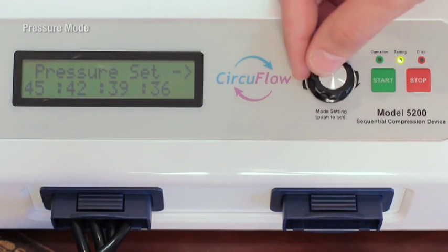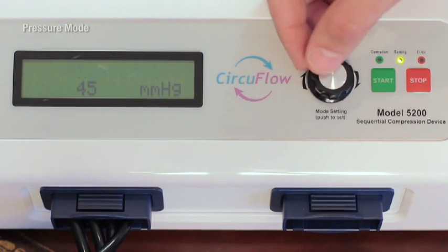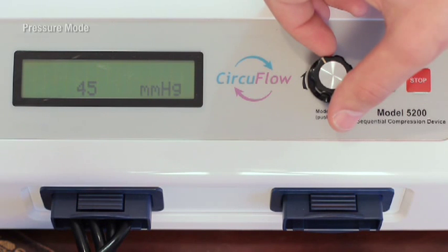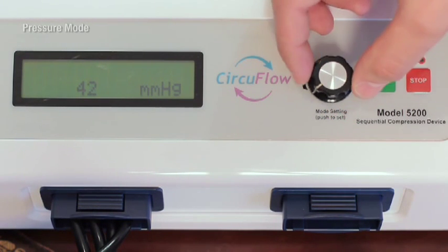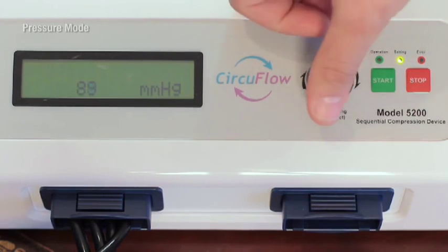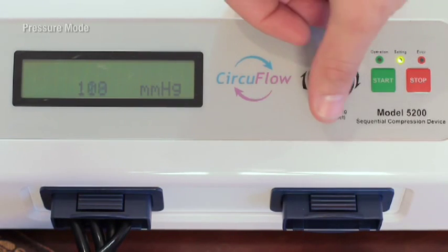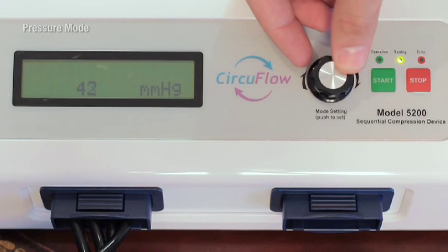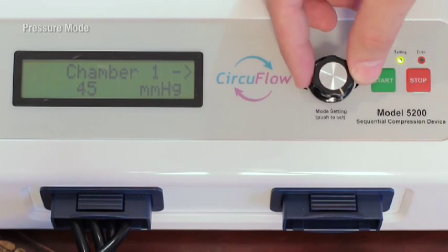Push the shuttle knob to select pressure set and then again on the individual chamber you want to modify. Individual pressures can be selected in all four chambers. You can increase and decrease the pressure by turning the shuttle knob to the right and left. Pressure can range from 25 to 120 millimeters mercury in increments of 1 millimeter mercury. Push the shuttle knob to confirm the new pressure.